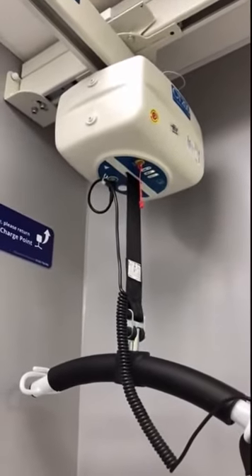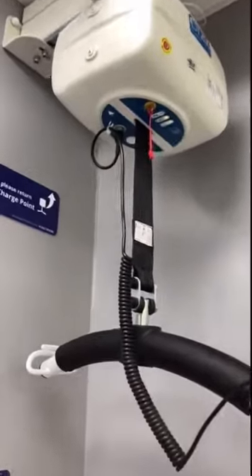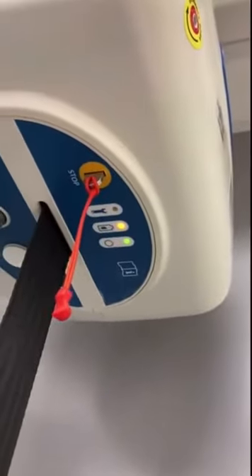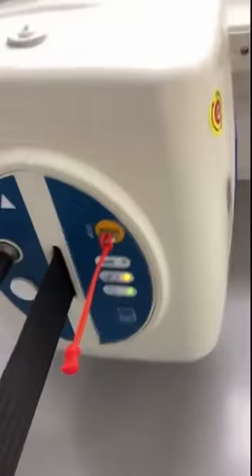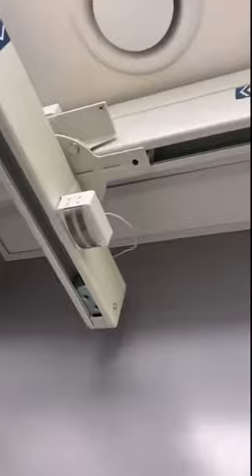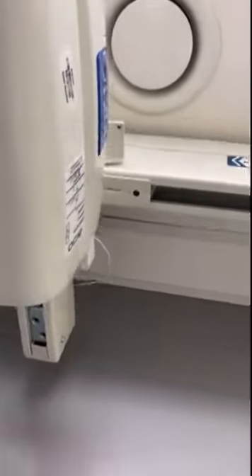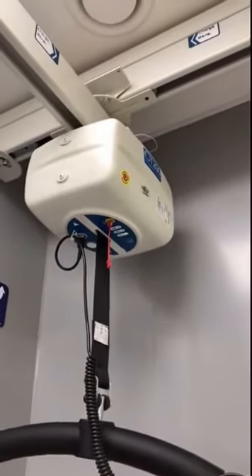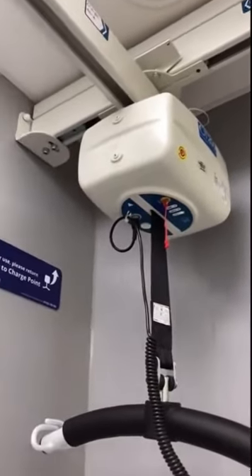When it's in this corner it should be charging, as indicated by the orange middle light. It charges on the contact sensors — there are two sensors available. When the hoist is not in use, it needs to be back in this position. If the light is not on for charging, it may be that the battery is full.